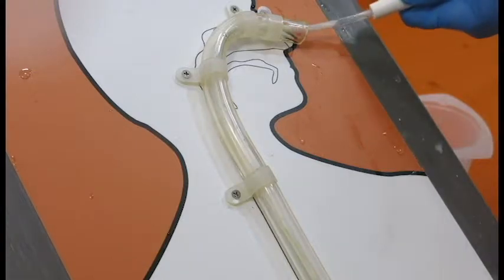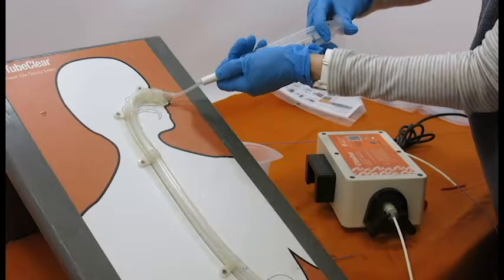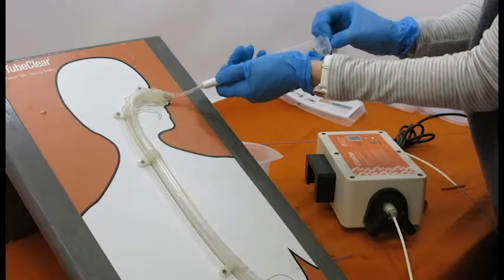Periodic aspiration and water flushing will assist the clearing process. With proper technique, dry clogs can typically be cleared in less than 20 minutes.